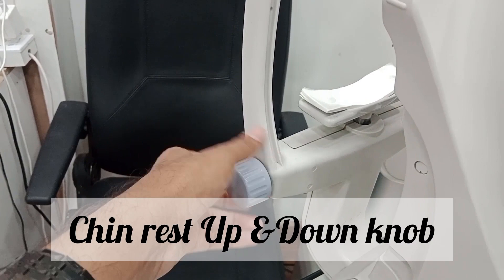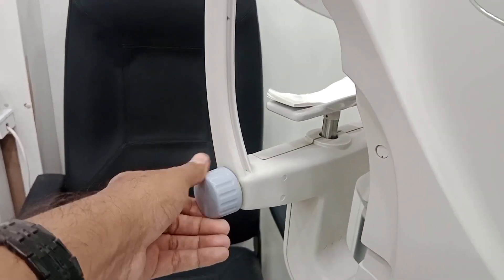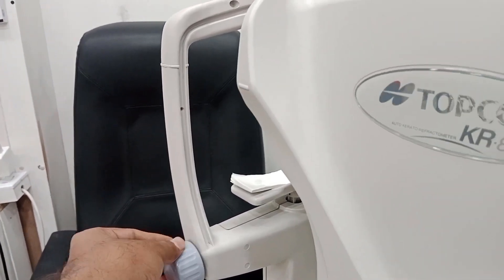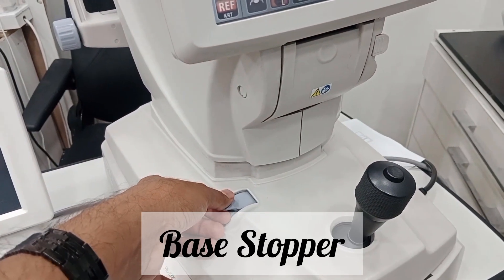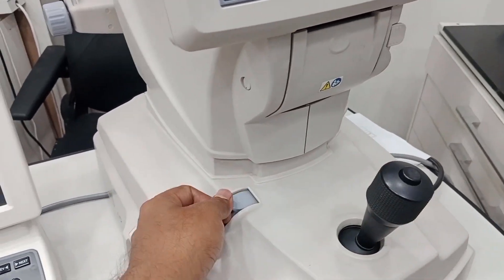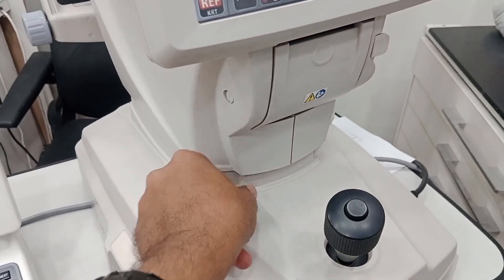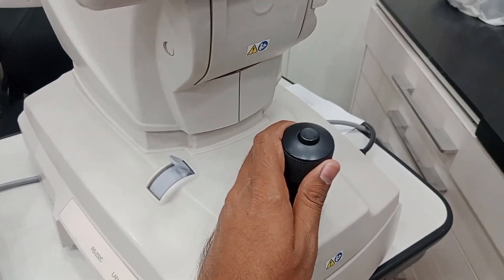This knob is the chin rest up and down knob — rotating it moves the chin rest upward or downward, so we can change its position according to the patient. This part is called the base stopper. When unlocked, the whole body of the auto ref can move to the right and left; when locked, it cannot move.